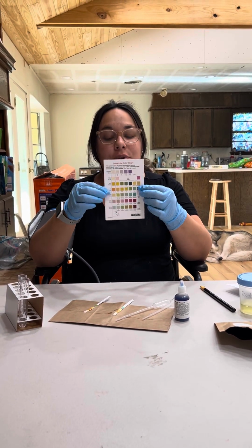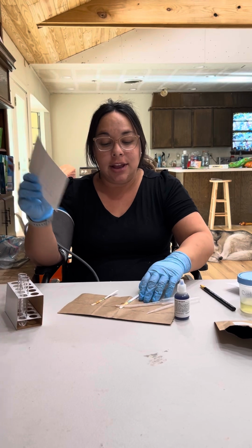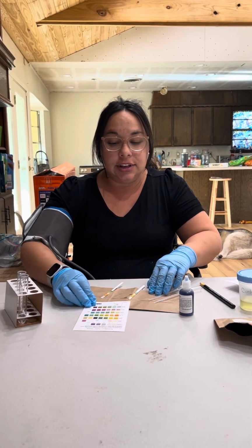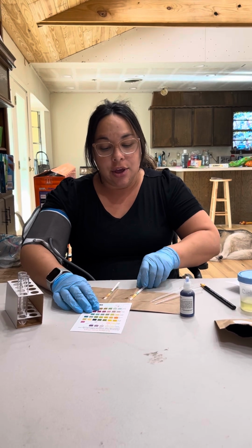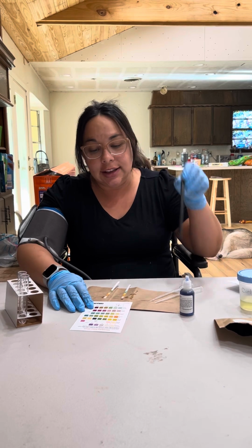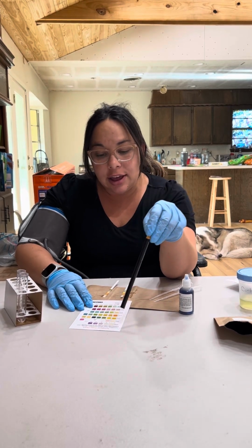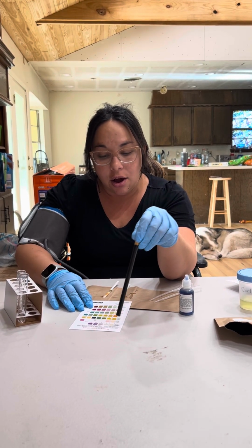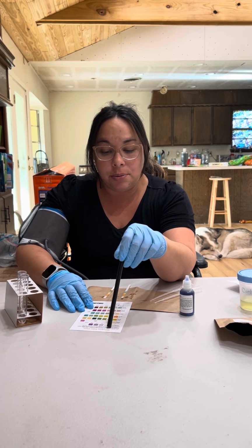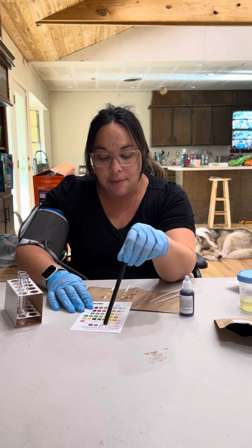Okay. And so with that, in the lab kit they give you this very handy dandy chart tool, and we'll compare them and see what the control group looks like versus the other one. We'll start with the leukocytes, and it appears that both of them are negative or plus or minus 15, depending.